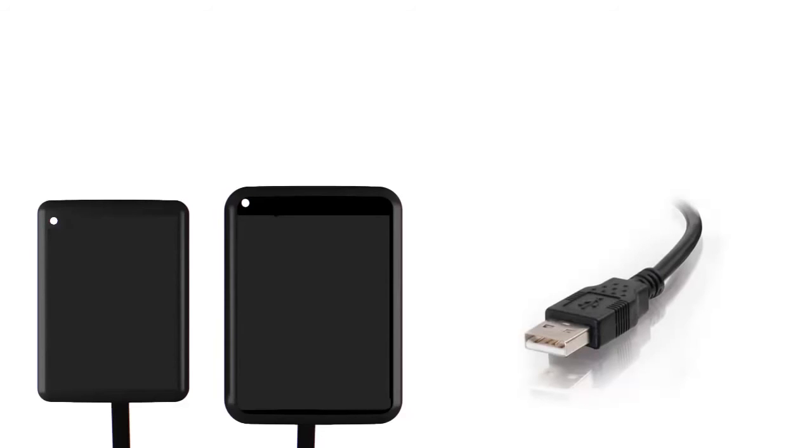RVG sensors have a direct to USB cable. The USB cable is 2.0 standard, but can also be used with the USB 3.0 ports found on newer computers.